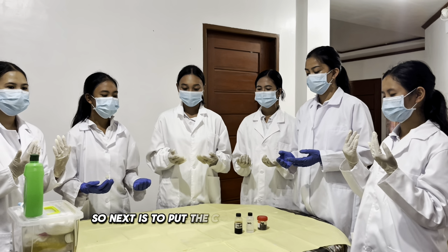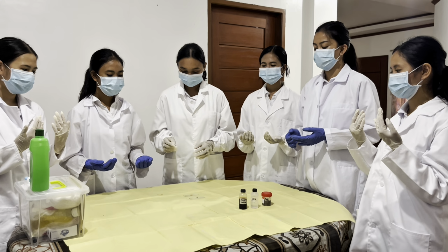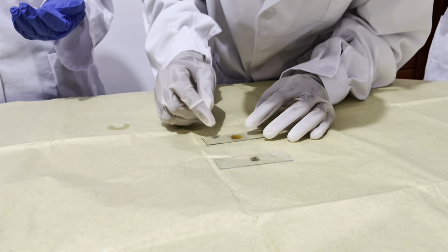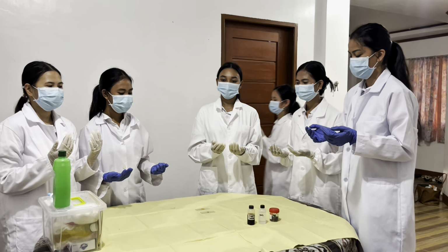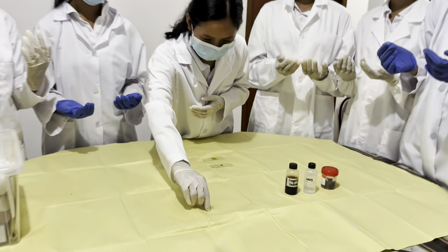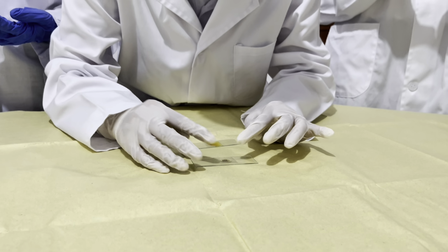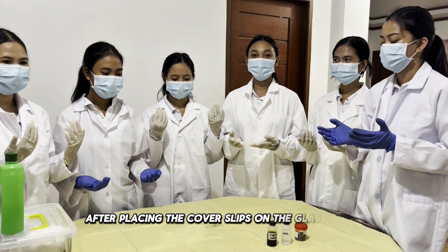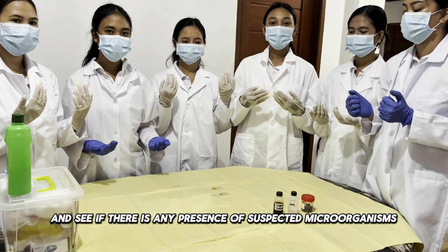So next is to put the cover slip on the mixture. One for the mixture with the Lugol's iodine, and now for the mixture with NSS solution. Make sure there are no air bubbles. After placing the cover slip on the glass slide, you may now view it under the microscope and see if there is any presence of suspected microorganism.